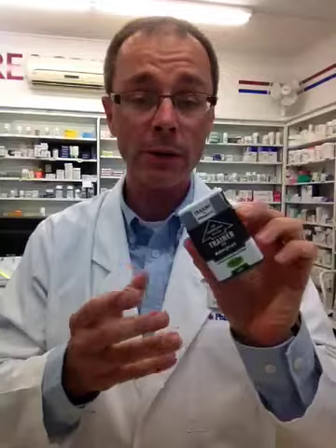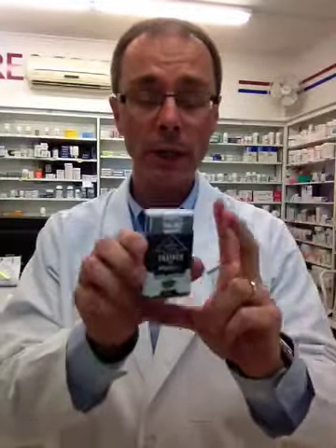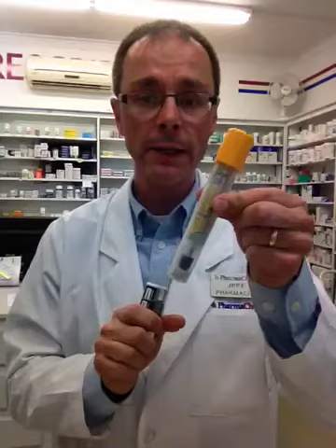So that's what the product looks like and that's what it sounds like. It's great for someone who is unsure of how to use a traditional EpiPen because it walks someone through it. Its shape also allows it to be slipped into a pocket or down into a purse more conveniently than a cylindrical tube. The product is Allerject — an epinephrine auto-injector for people having anaphylactic issues. It's available now and covered under most third parties, the same as EpiPen.